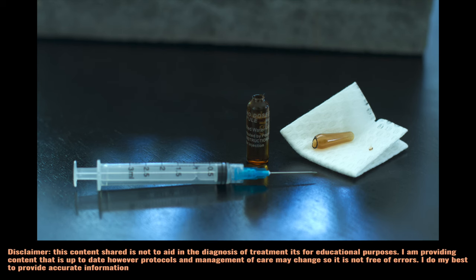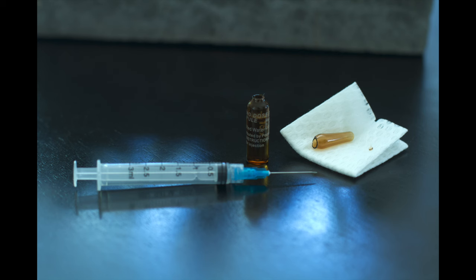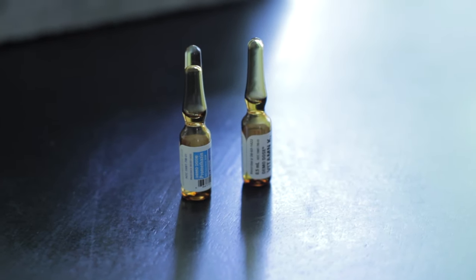Hey what's up everyone, Christina nurse practitioner here. Today we're going to talk about how to open up a glass ampule. You want to make sure before you do your hand hygiene and you verify your six rights, which is right patient, right medication, right dose, right time, right route, and right documentation.